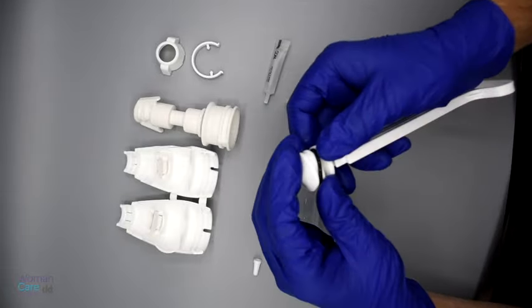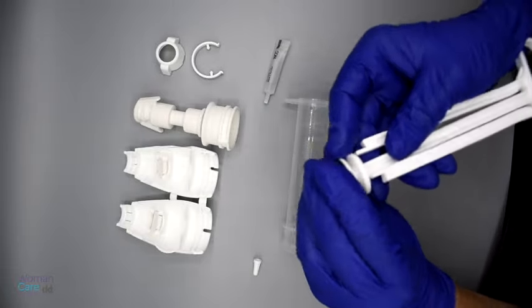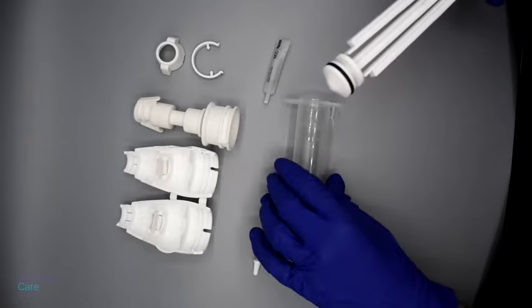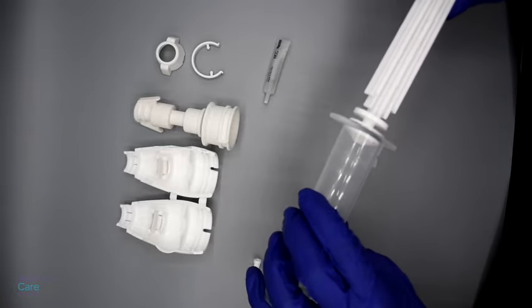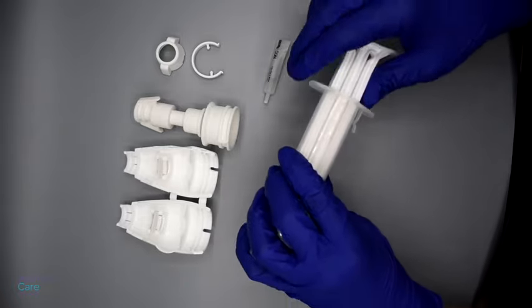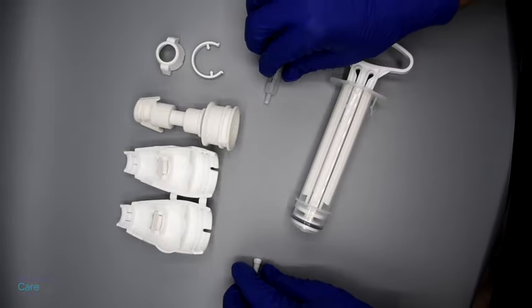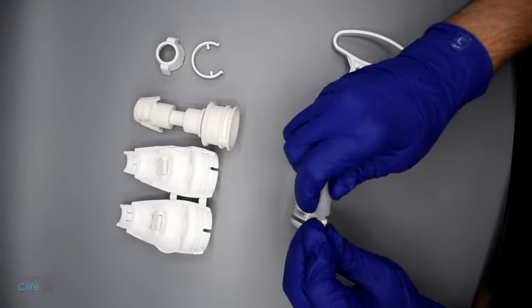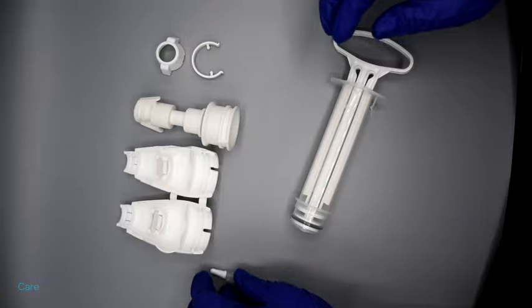Then put the o-ring in the section above. Insert the plunger in the cylinder. Make sure you push straight into the cylinder and not on an angle.